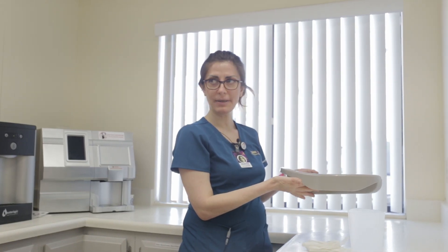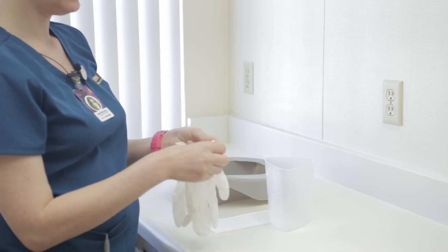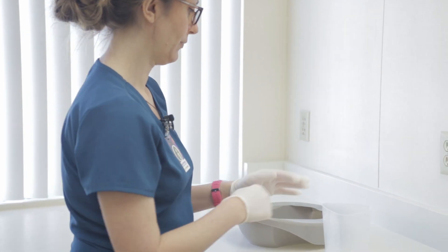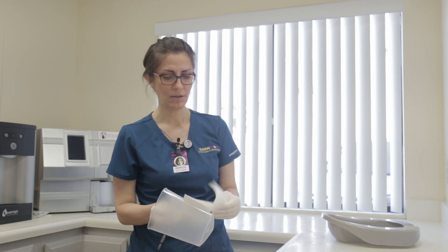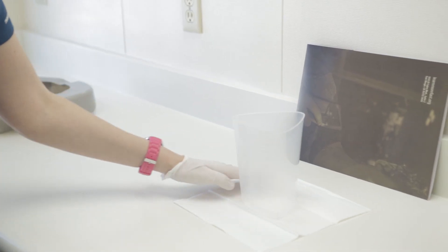You will have your graduated cylinder and gloves. Before you grab the bedpan, put on your gloves first. Place your barrier, which is a paper towel, on the counter — not the overhead table — and place your graduated cylinder on top of it.